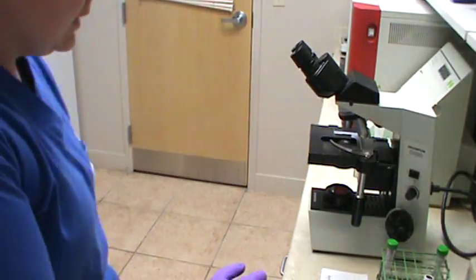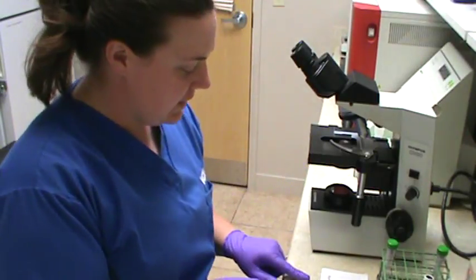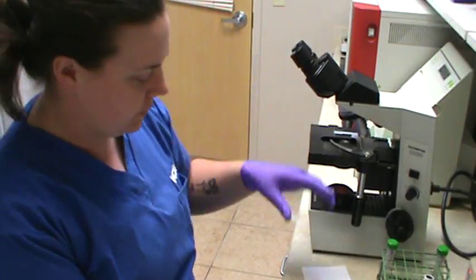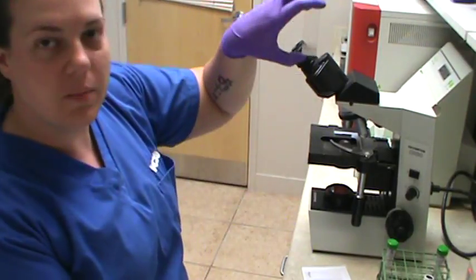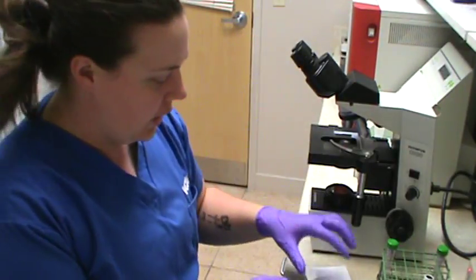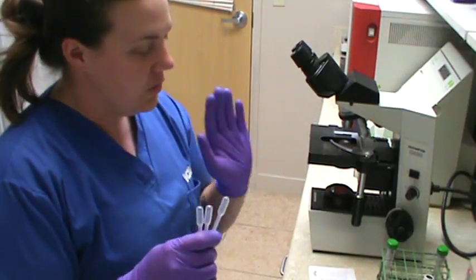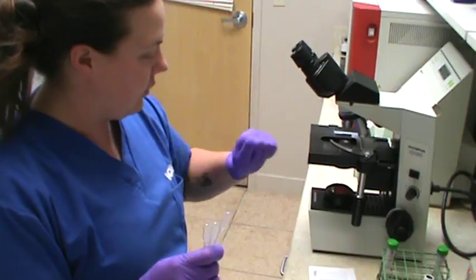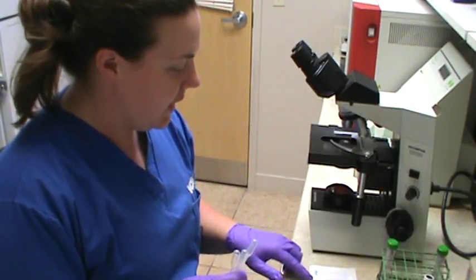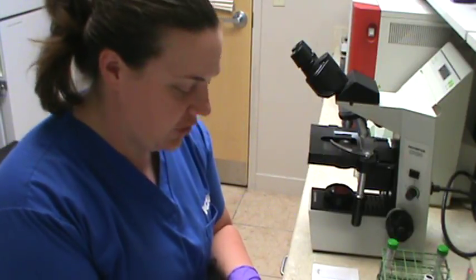So continuing on with task 19, we're over at our microscope now. I have 3 different slides down here labeled as major, minor, and control. And I also have 3 different pipettes to use because once I look at my tubes macroscopically after resuspending them, I'm going to also place 1 drop onto each slide and take a look microscopically to see if there's any agglutination at all.